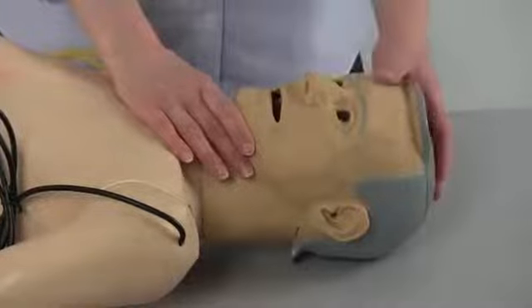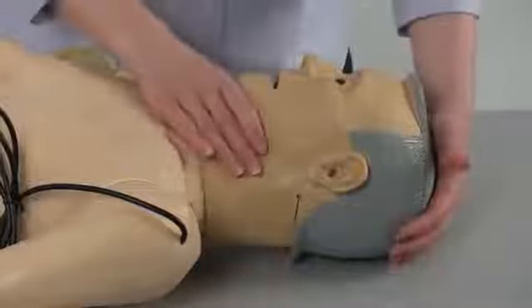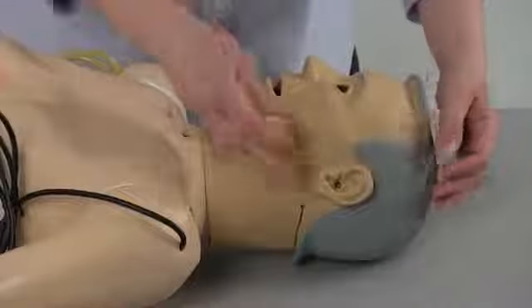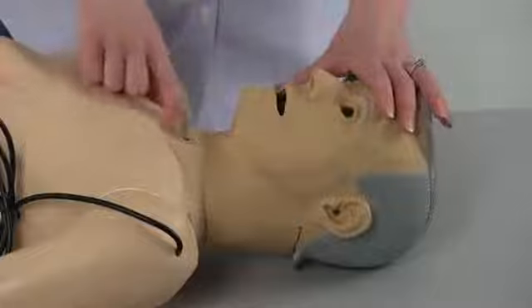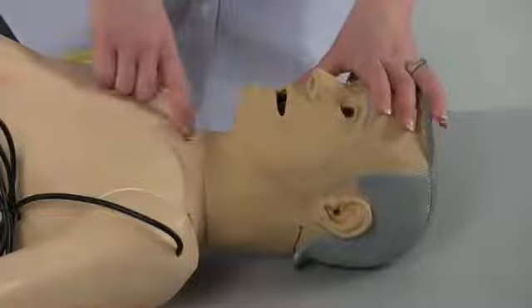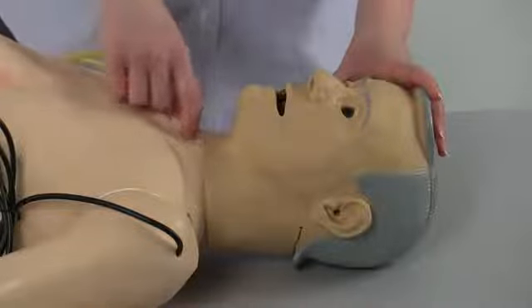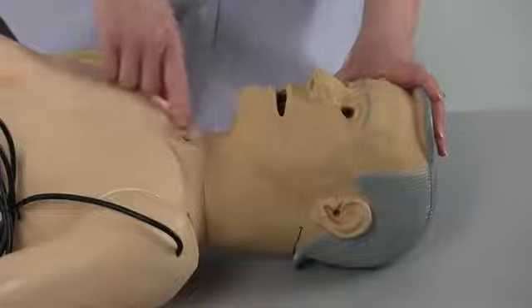Additional features about Jerry or Carrie's head: both ears can be irrigated using water. Simply drain the ear by tilting the head until the water runs out. He or she also has a permanent tracheostomy site. Water can be added to complete and advanced versions — approximately 20 cc's can be added into the tracheostomy site for washing and suctioning practice. The tube on the inside of the mannequin is permanently fixed, and any materials added have to be suctioned out.